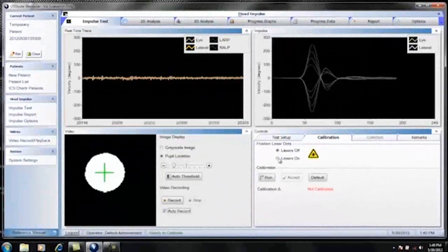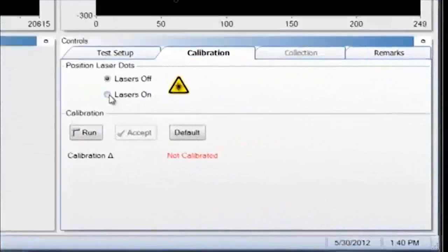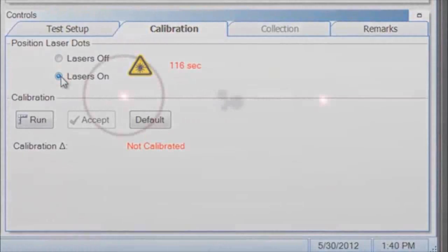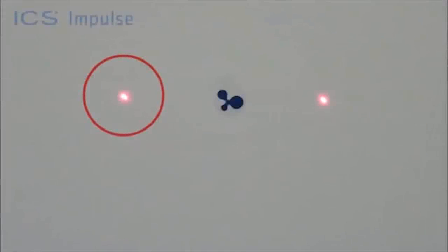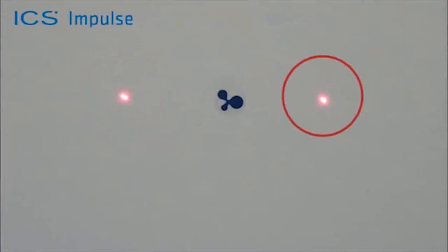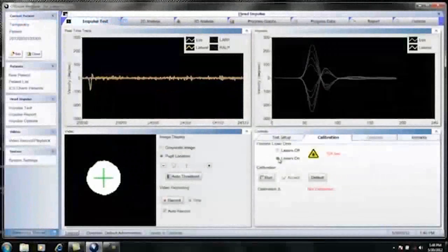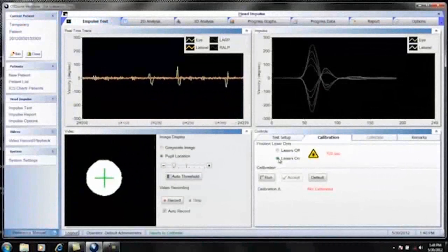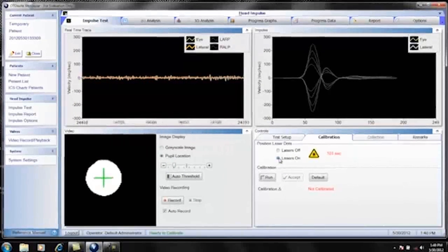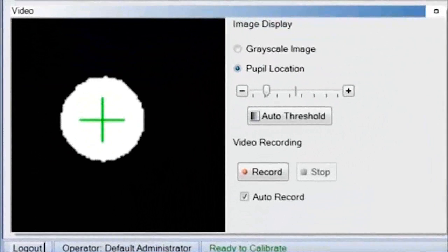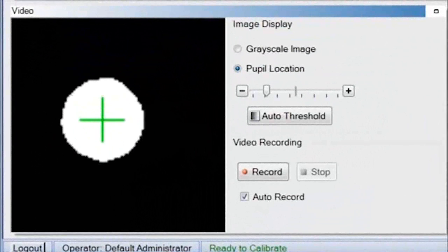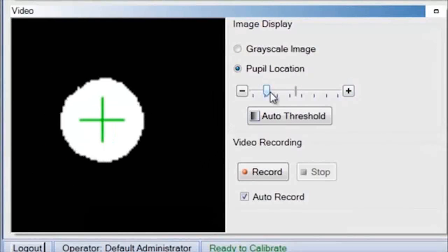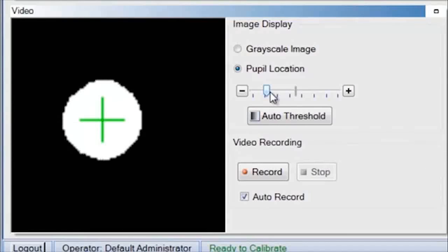Turn the laser on. There are two laser dots projected on the wall. Ask the patient to look at the left dot, then the right dot. This ensures the camera is tracking the pupil. If the crosshair fails to track the pupil, jumps around or does not stay centered on the pupil, move the threshold slider to make further adjustments. Adjust the pupil detection by clicking plus or minus or by sliding the bar.